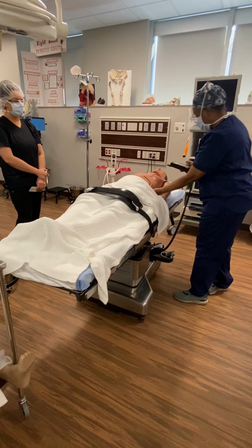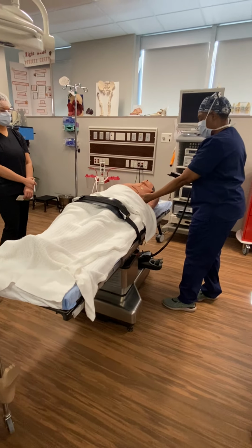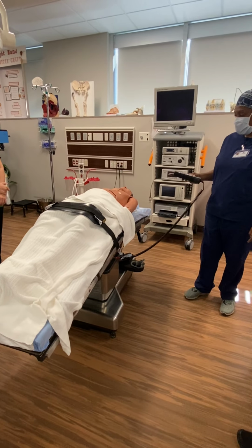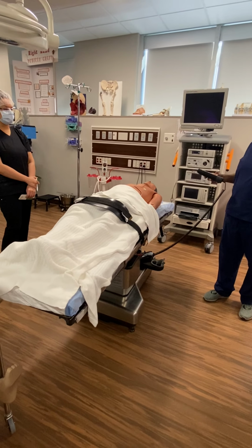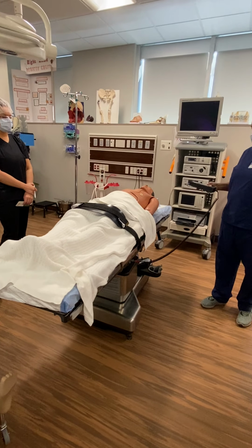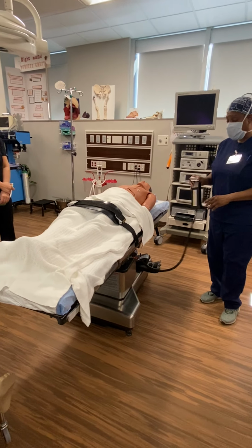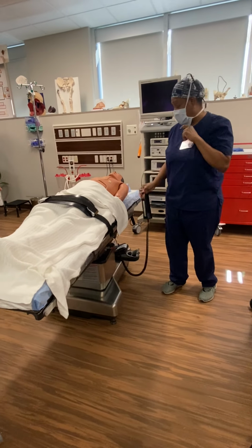The flex means it's going to flex above the knee, right here, where the back is. Then we get this belt, put it inside that bar, and slide it down. I level it back, and do that side too. That's how you operate the bed, and each of you is going to get to practice.